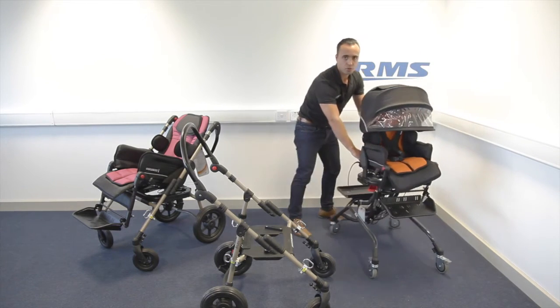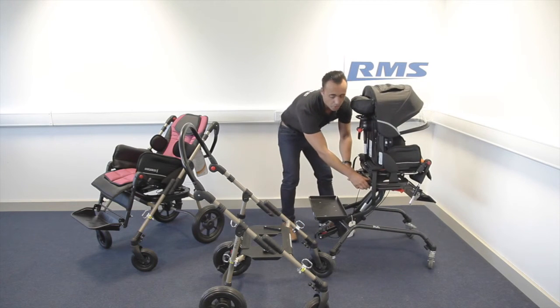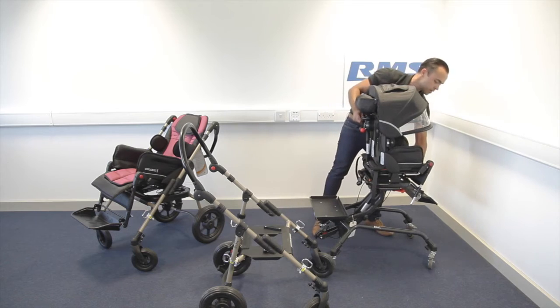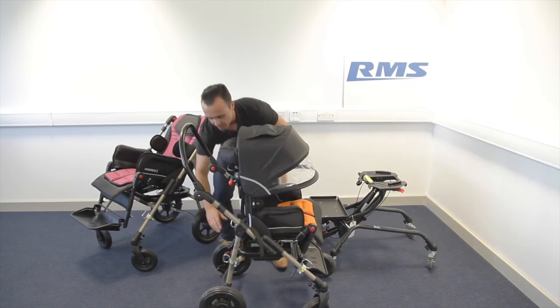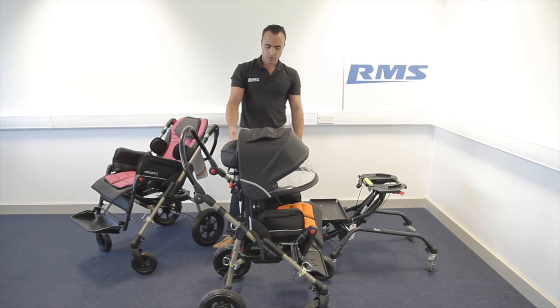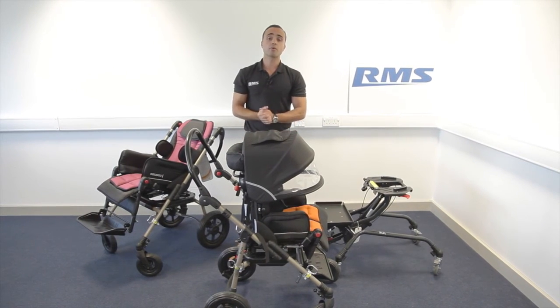Let me show you — it's the same mechanism. Red button, unlock, slide, remove, slide again, unlock, and that's it. You can also interface the bug seat with a power wheelchair, like the Invicta.